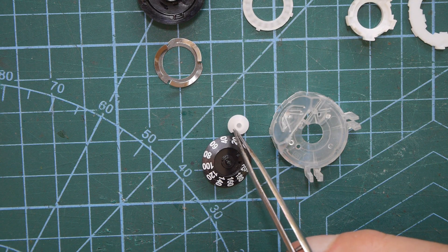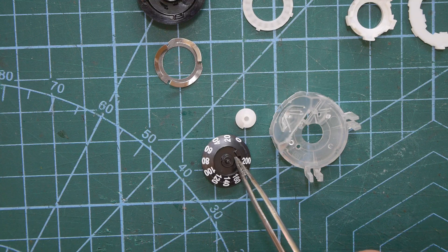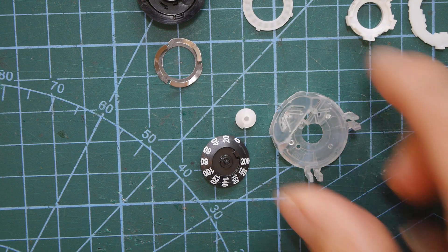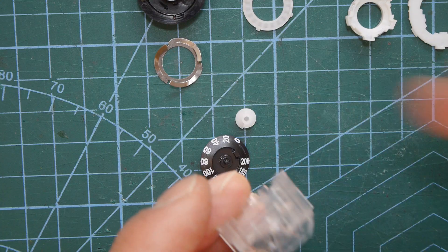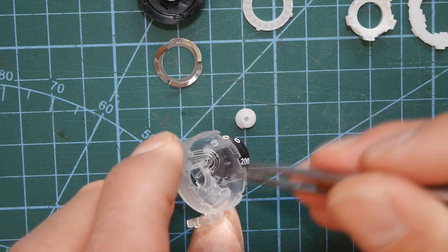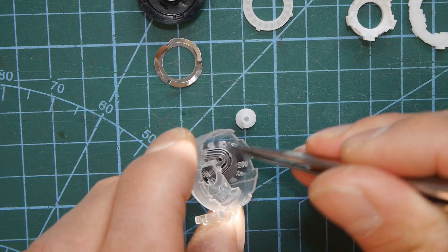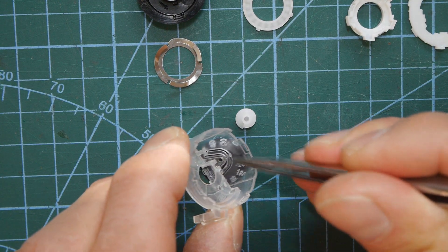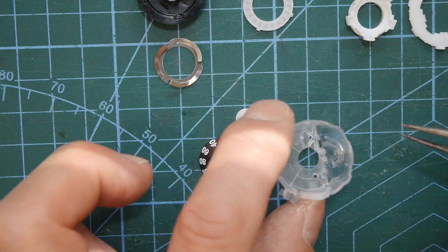But again the important bit is this little tab here. I'm sorry I can't get any closer I haven't quite got the right photography equipment for that but there's a little tab there and that catches on the case and that stops this going past its zero point.